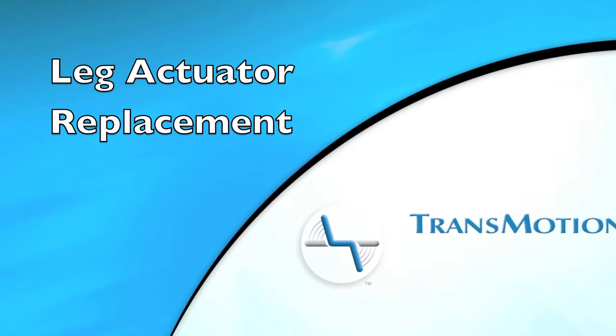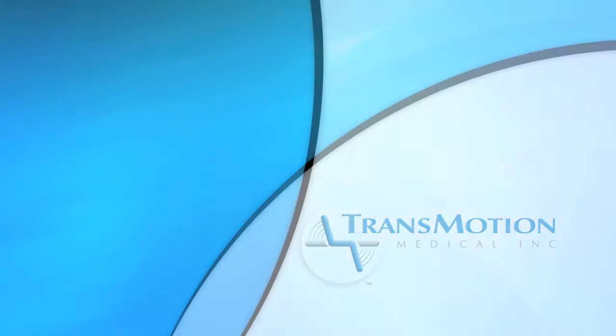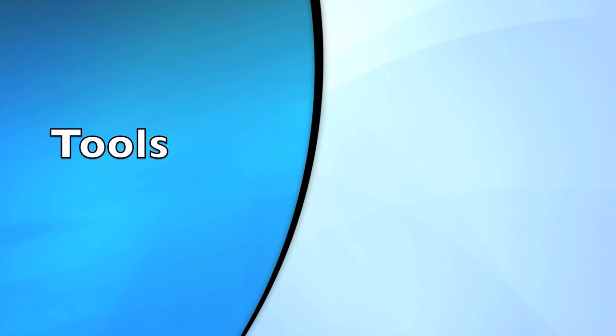The following video provides instruction on how to properly replace an actuator on a TransMotion Medical stretcher chair. You will need the following tools.